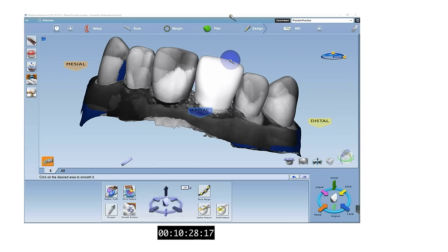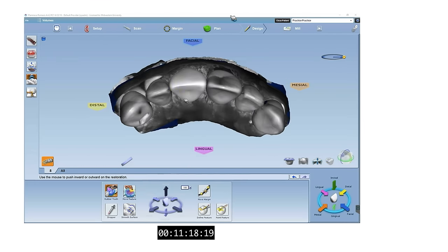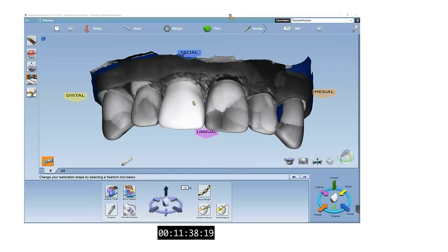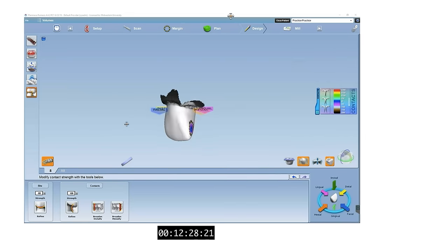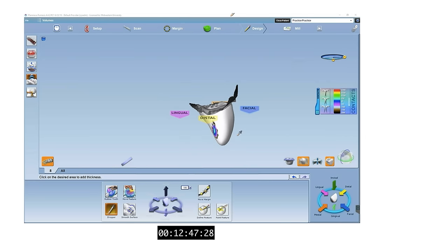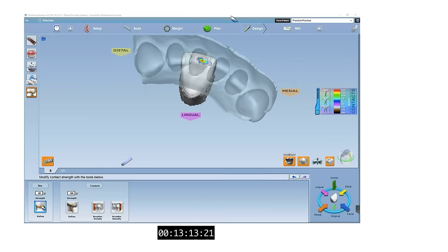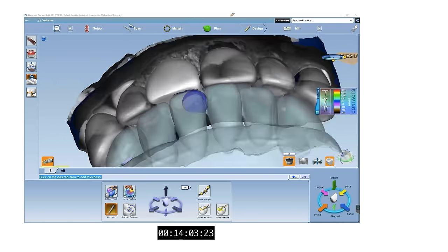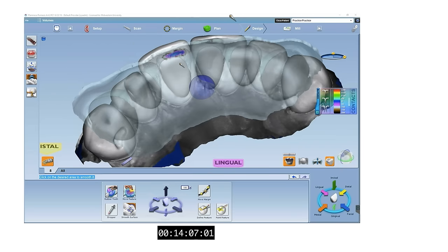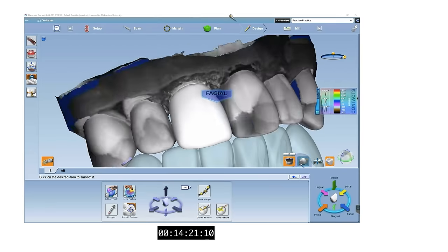When making adjustments to your design, be sure to rotate the model at different views to ensure that your crown will emulate a natural tooth in accordance with the rest of your patient's dentition. Now that we have our general tooth form, we can go ahead and establish our contacts. Contacts can always be reduced once the crown is milled, but to minimize the amount of adjustments needed, try to get your contacts to a seafoam or dark blue color. The same goes for your occlusion. The eyedropper tool is useful for these adjustments, and the smooth surface tool can be used to smooth out our additions and reductions.